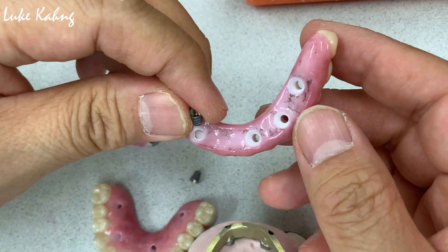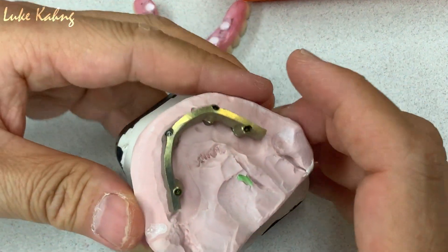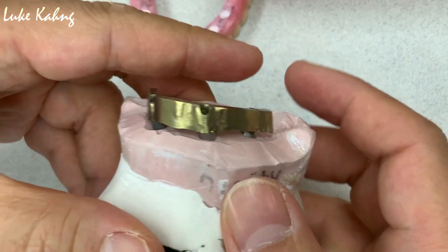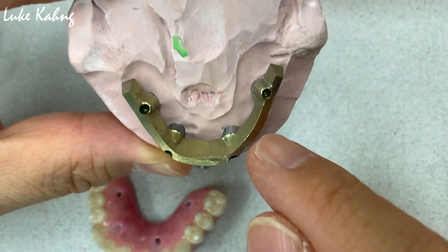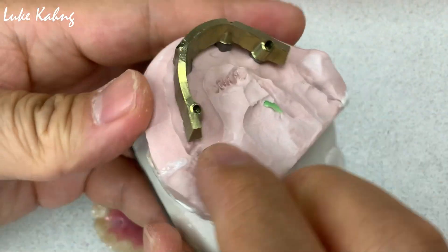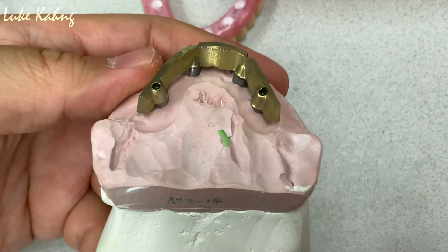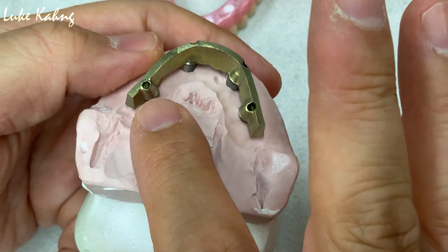Today I would like to introduce what we did, which is great work by our R&D team. They made this whole entire hybrid titanium base, which is not going to fail anything.